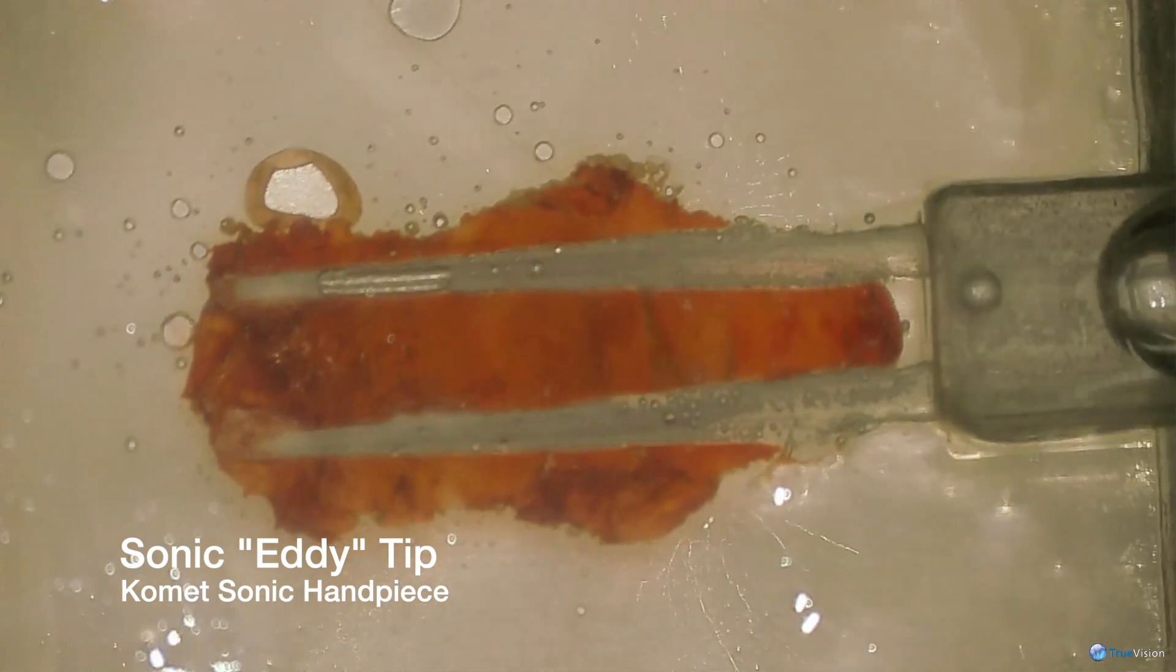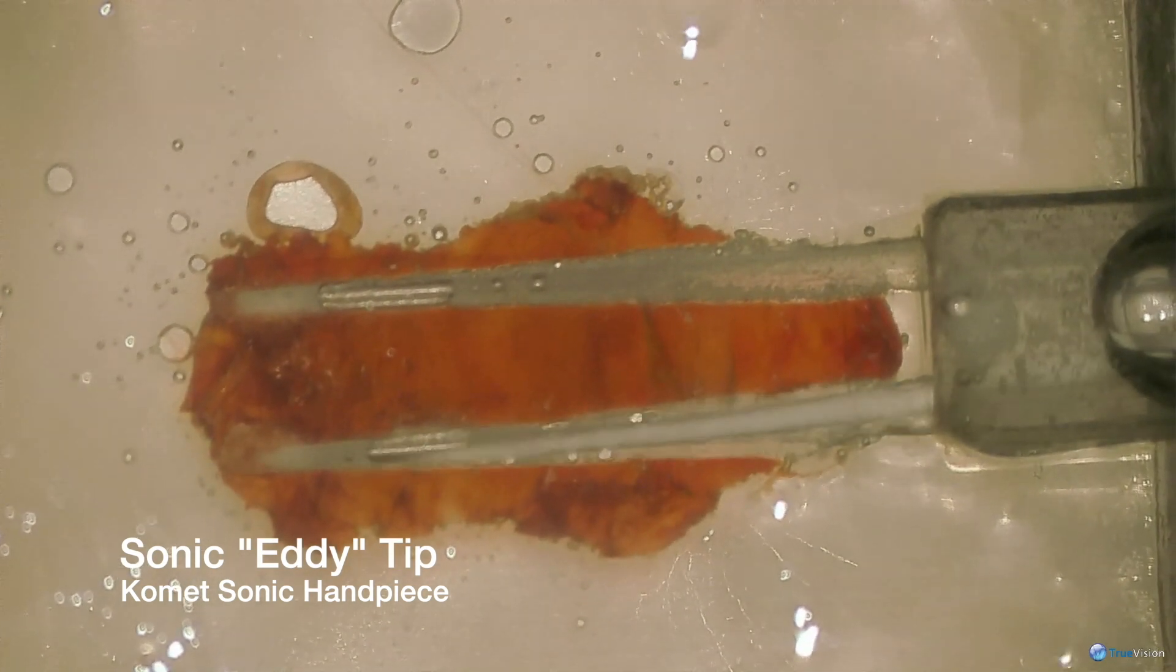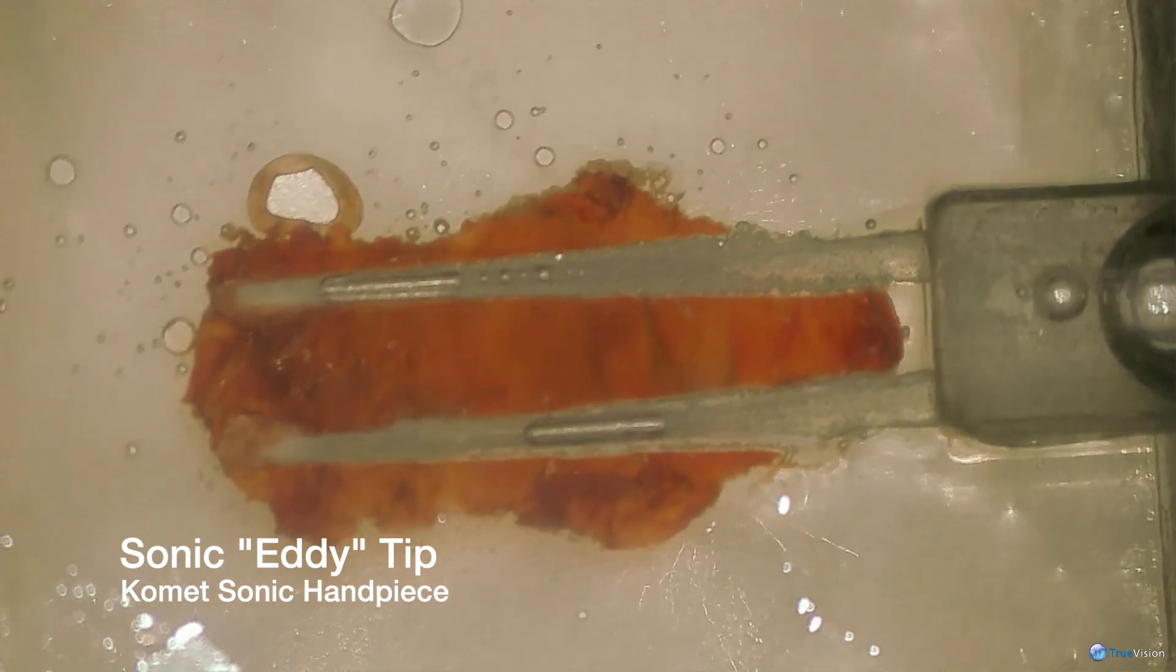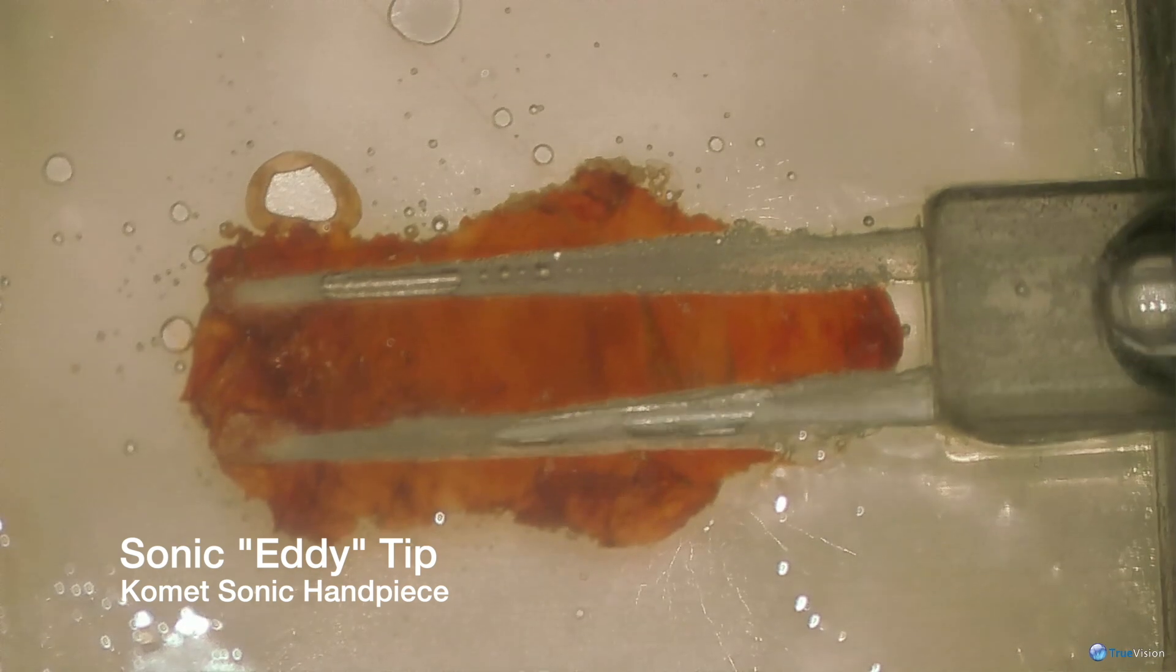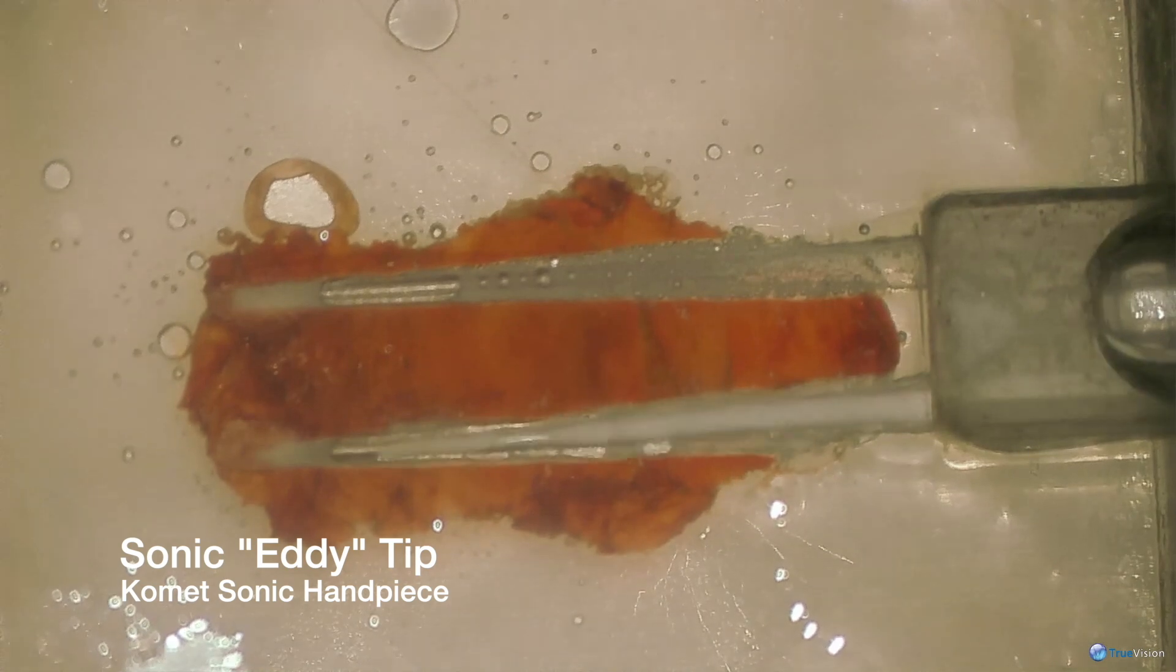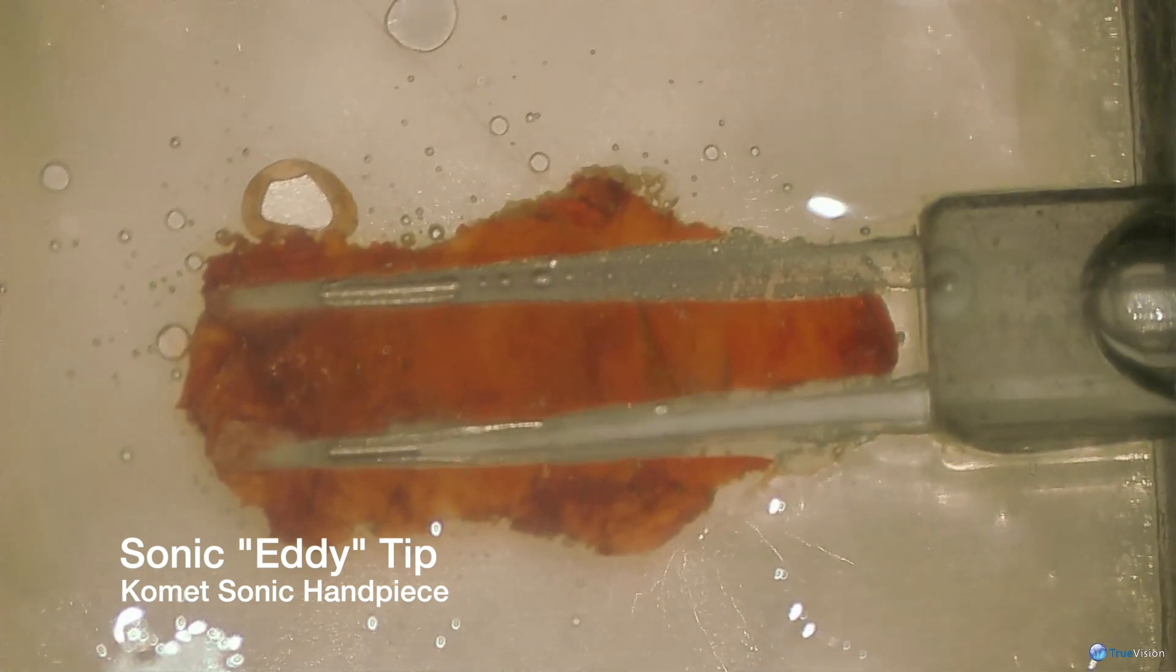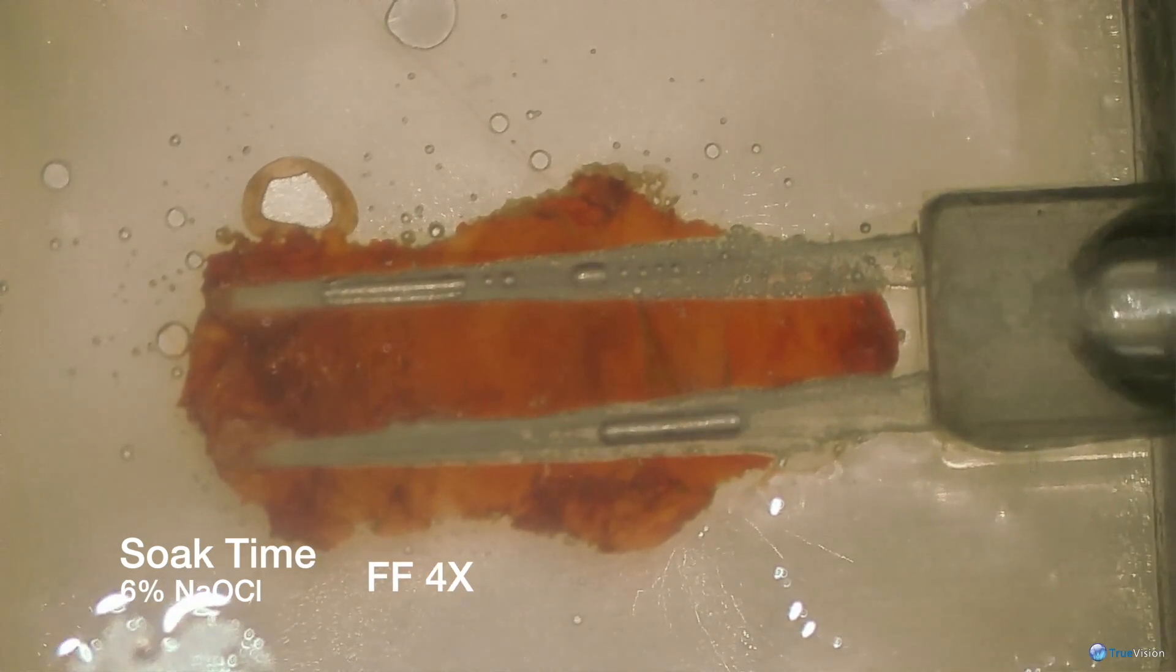And it definitely is pushing debris around in there, breaking stuff loose. It's not affecting the digestion of the connective tissue like I had expected, actually. It really appears to be the time that makes the most difference, although when the eddy tip is in there activating and we follow with positive pressure irrigation, it's an effective back and forth.